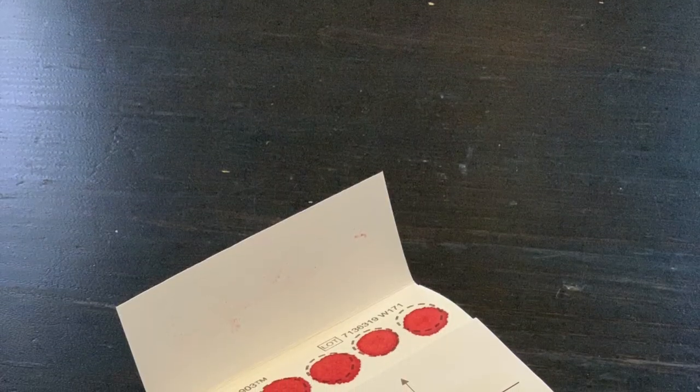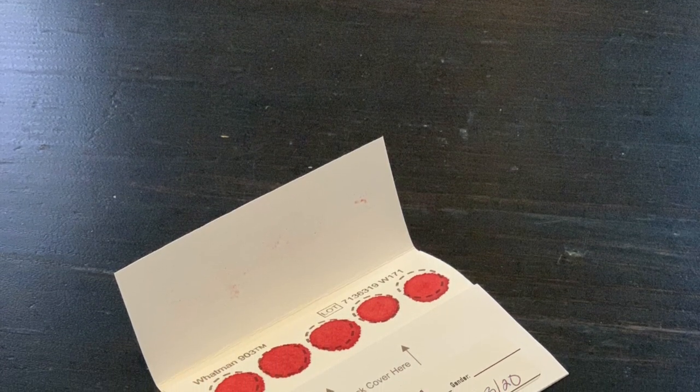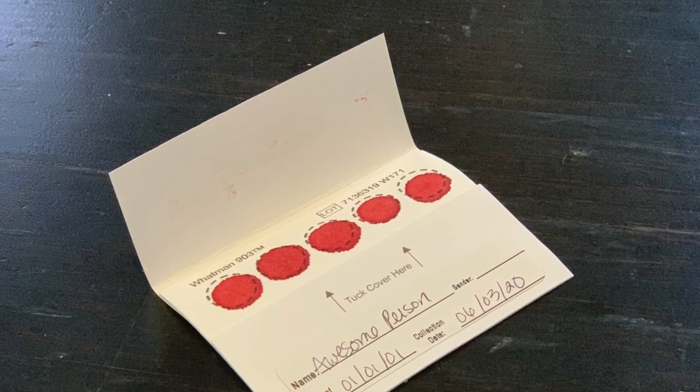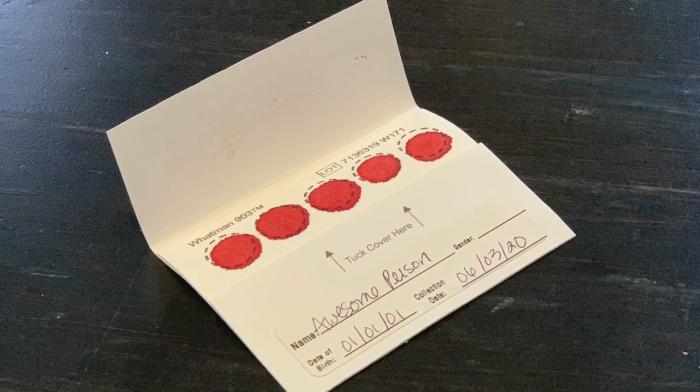Let your collection card sit for at least two hours to dry before sending it back. Place it in a cool, dry place away from sunlight. Do not add additional blood drops after your blood has dried.